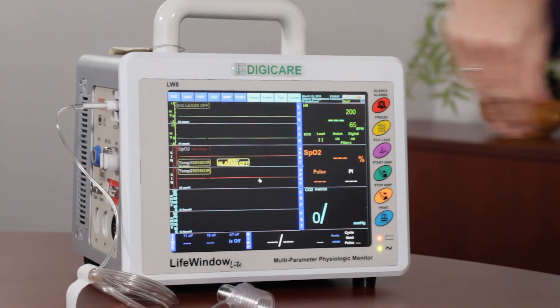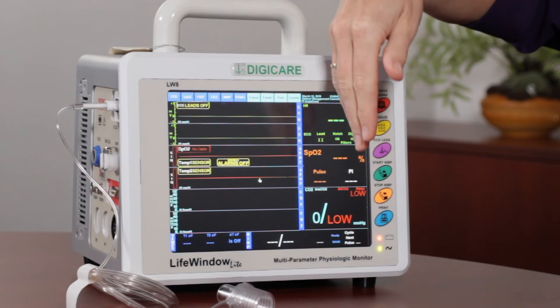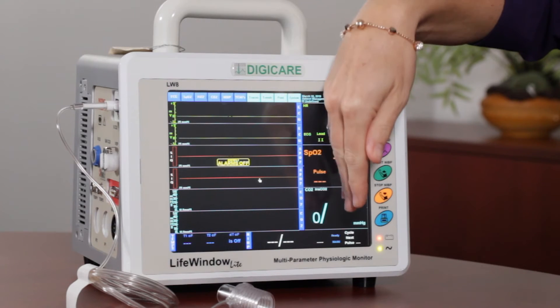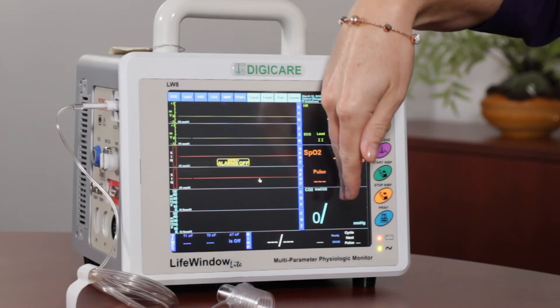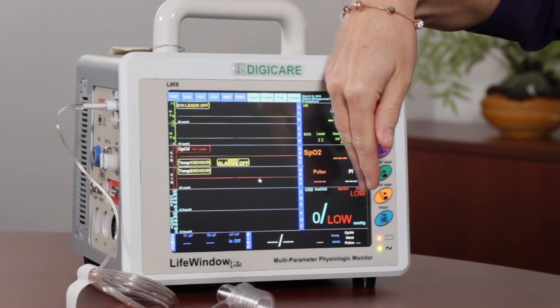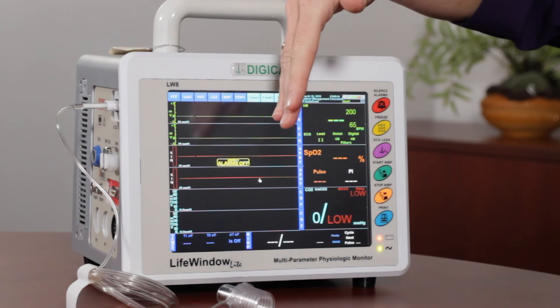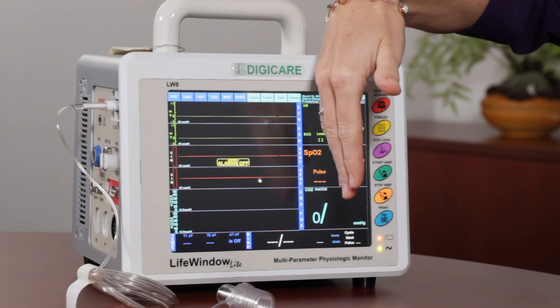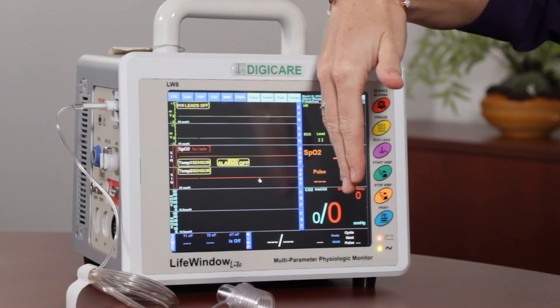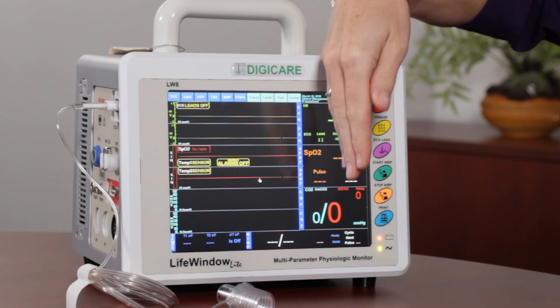We have no waveform on the side here, so you're good to go — you can measure on the patient. However, if it says occlusion, or not ready to zero, or any other reading on the bottom that doesn't have this big red zero, either you need to change your adapter or your sample line and try to re-zero. If you continue to have an issue, call technical support and we can run through some things on the best practices of CO2, which will also be in a different video.